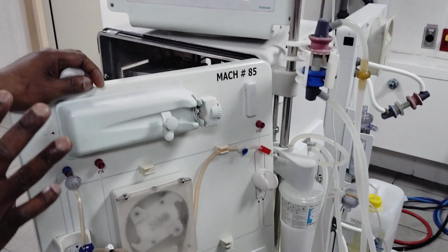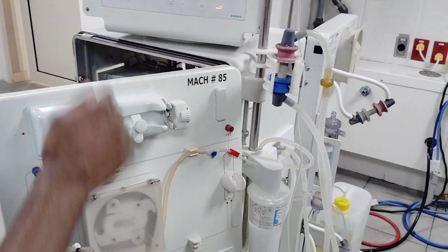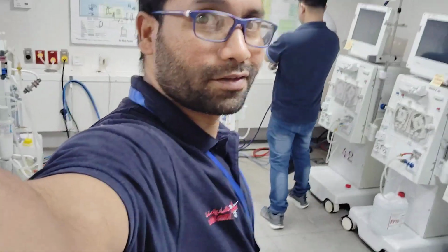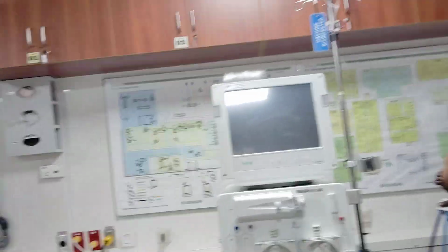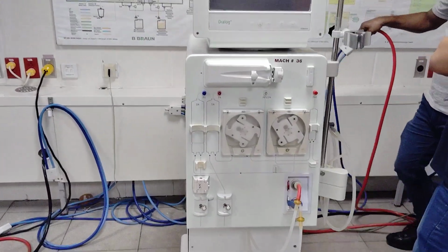How to disinfect the machine? Okay. So now this machine is in preparation. I don't want to disturb it. We'll come back here. Normally for any machine, the water connection should be there. Okay. So training is finished. So we are going for disinfection of this machine. This is called the SSP connector. Instant SSP connector. So just push it and then make sure of the water connection.